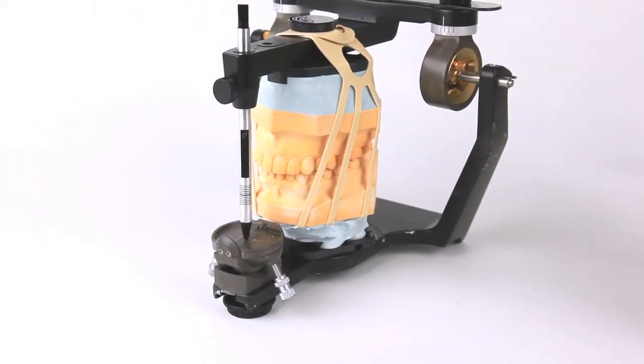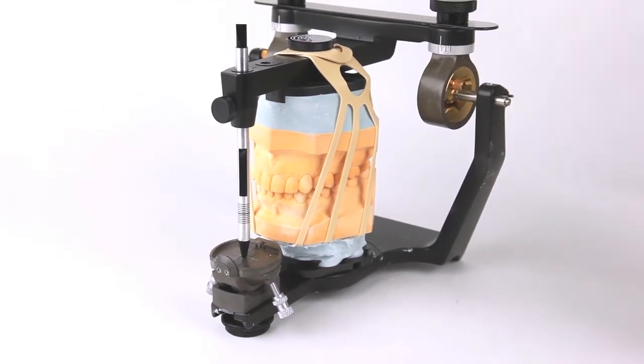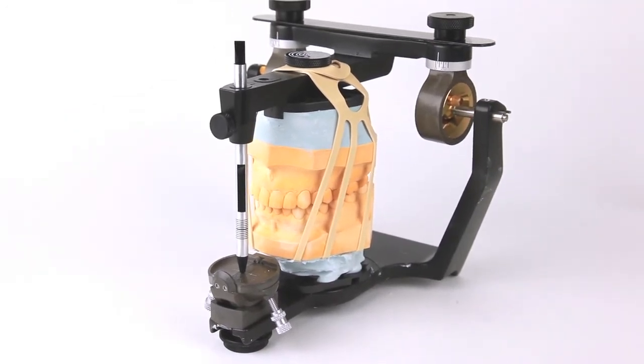At this point, the articulator can be left as is for the stone to set or it can be inverted, whichever is desired.